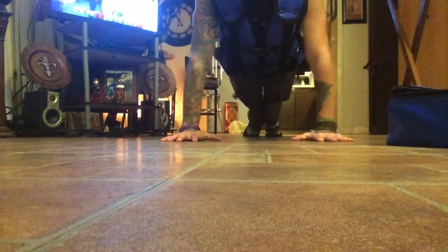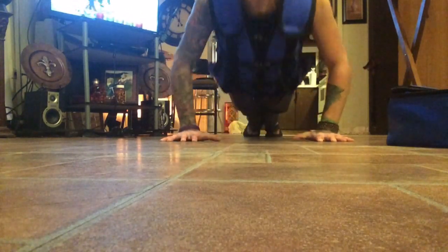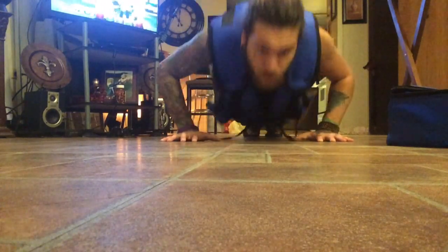Just having this — even though I've only had it a day — the ease of being able to do stuff is huge. Like right now there's a mountain of dishes I have to do. Normally I'd be juggling treatment time with chores, but with this bad boy you can do whatever you want. You can knock out treatments, work around the house, do laundry, go for a run, walk your dog — just wherever. It's so portable and lightweight. You can add the Aflo vest into exercise and it's going to make your exercise ten times more effective on your lungs.